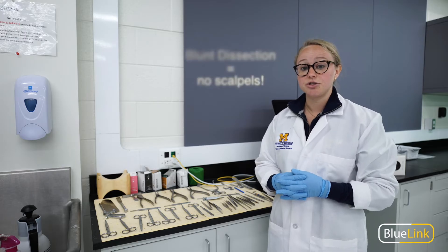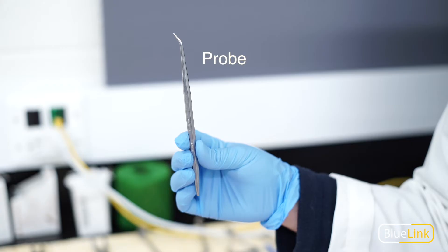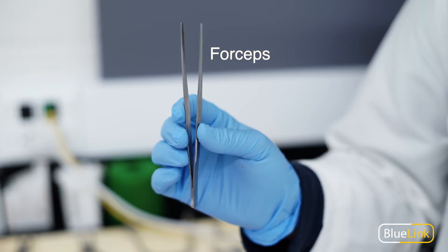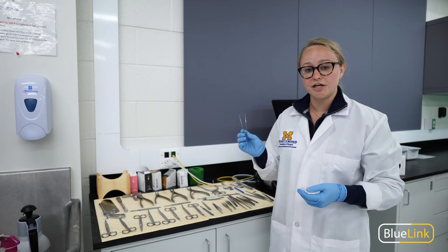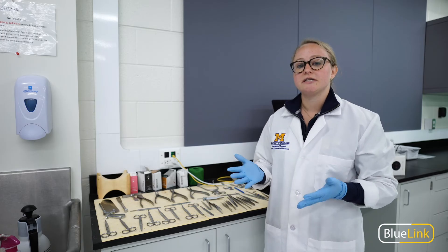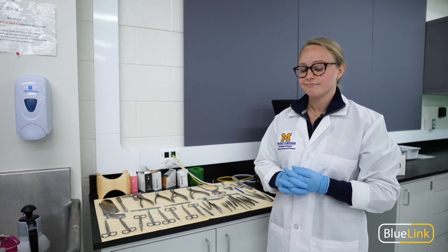Blunt dissection is accomplished using blunt tools. This includes a probe, forceps, which you can use to remove and pick fat and fascia out of your way, and even simply your hands, which you can use to move large structures and muscles out of your way.